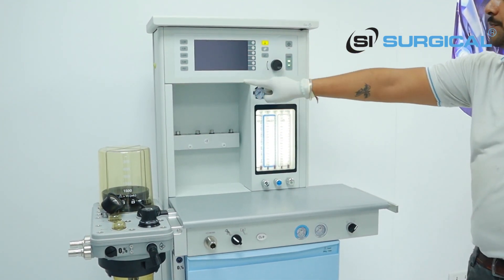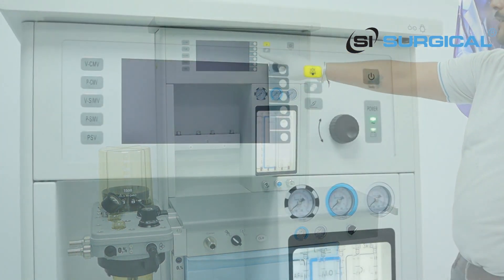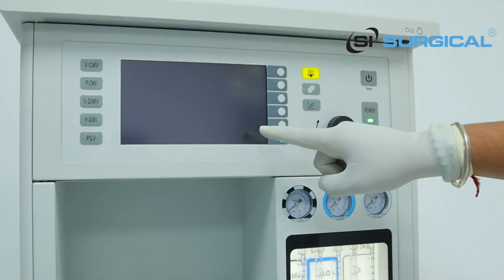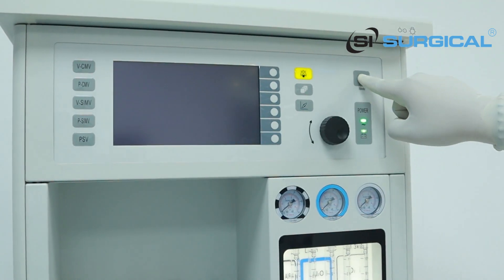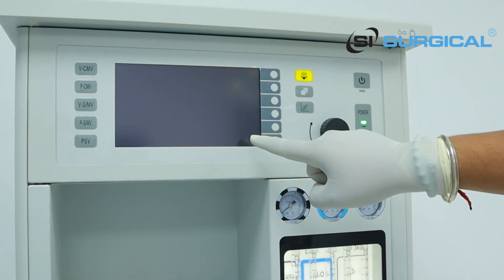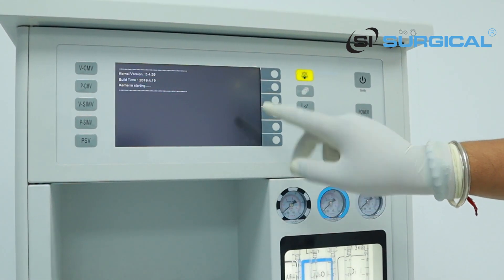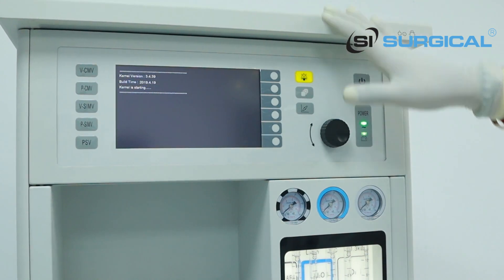If you want to open the anesthesia machine, if you click this one, the ventilator anesthesia workstation monitor becomes on.